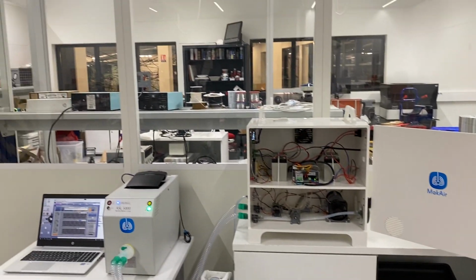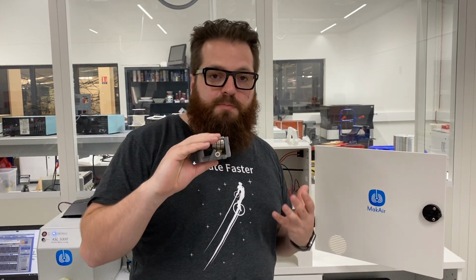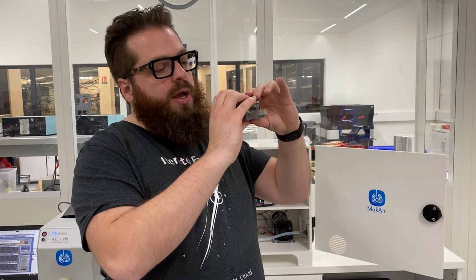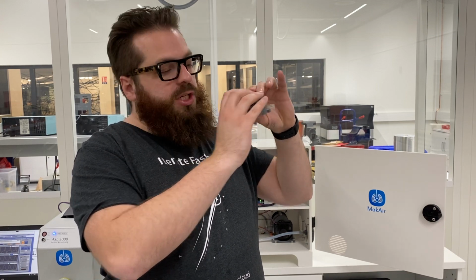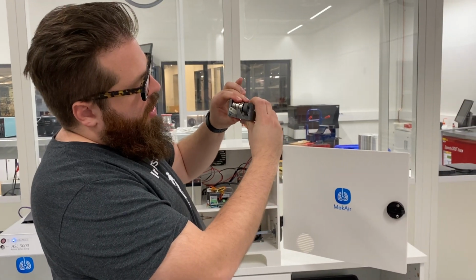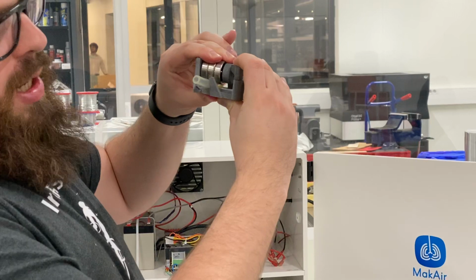This is a very simple design. You can print it in 3D. You can also use cold casting and factories designed for this, so there are multiple possibilities to get there. And you have something with a servo motor which pushes down and puts some pressure or not on the pipe, and you can cut the air or slightly release a little bit.